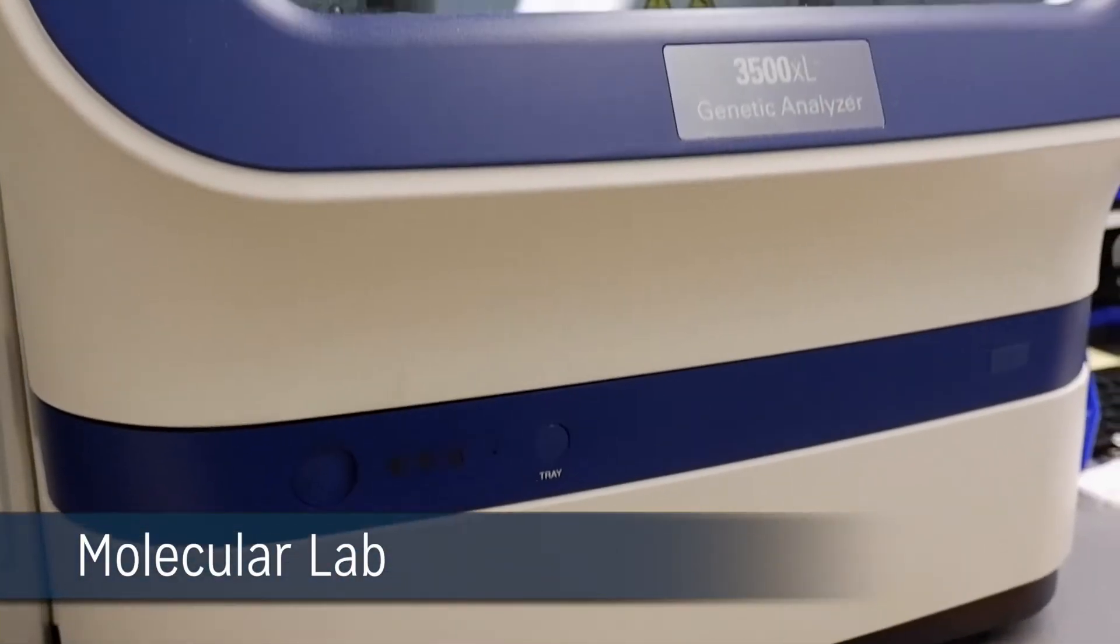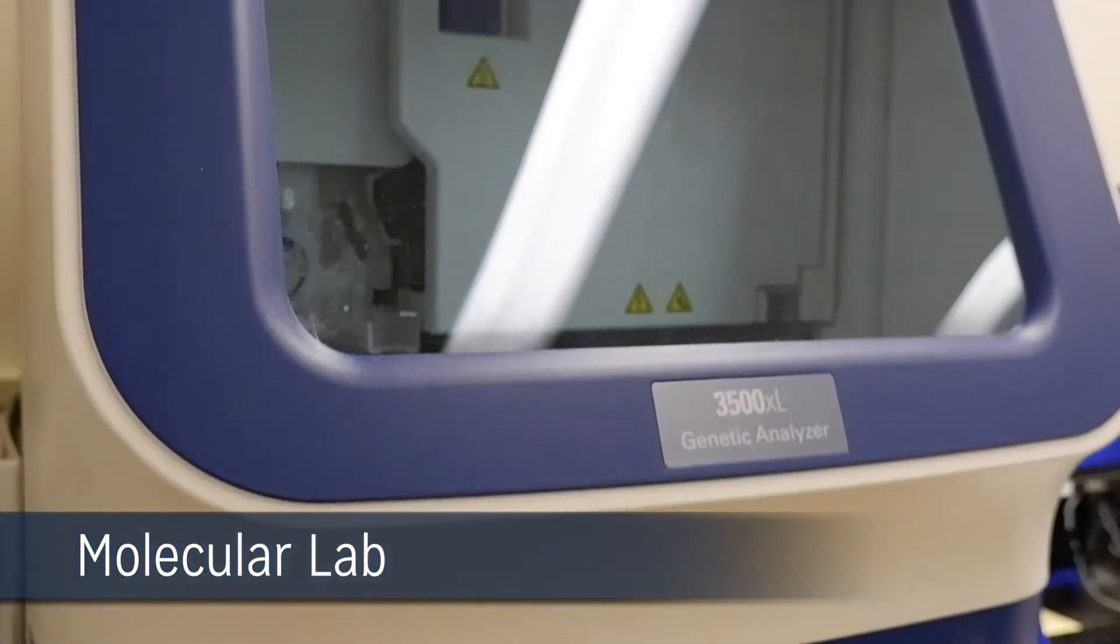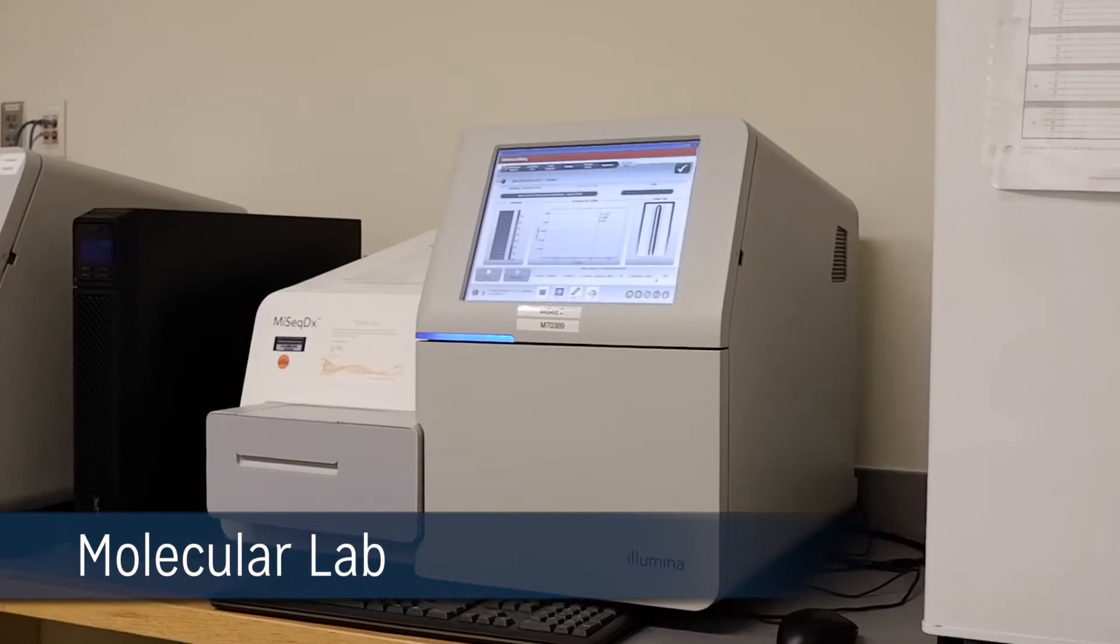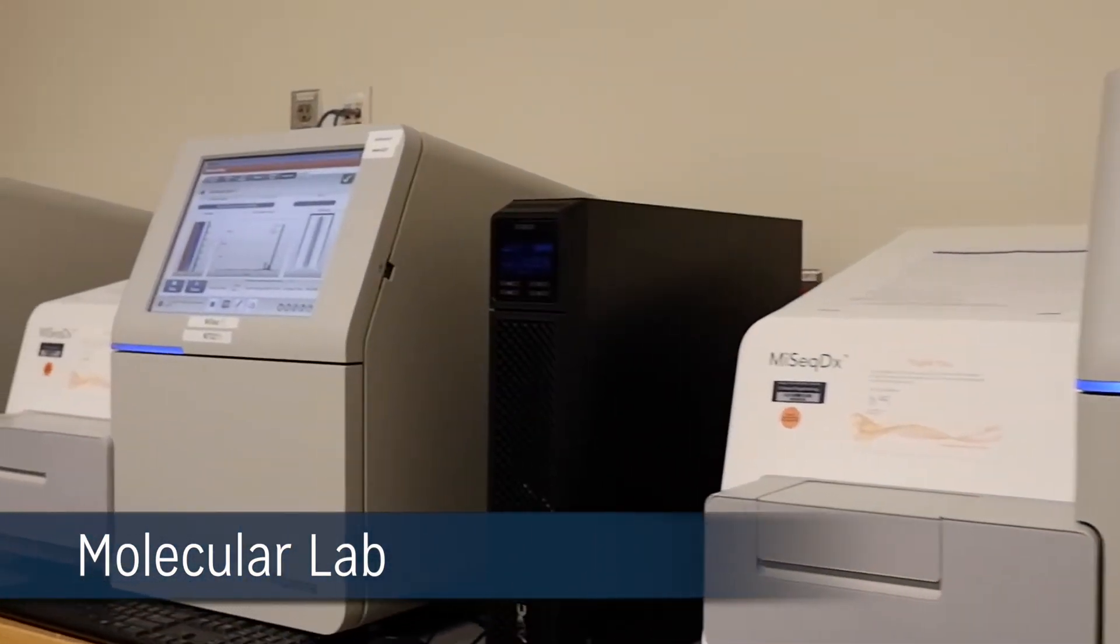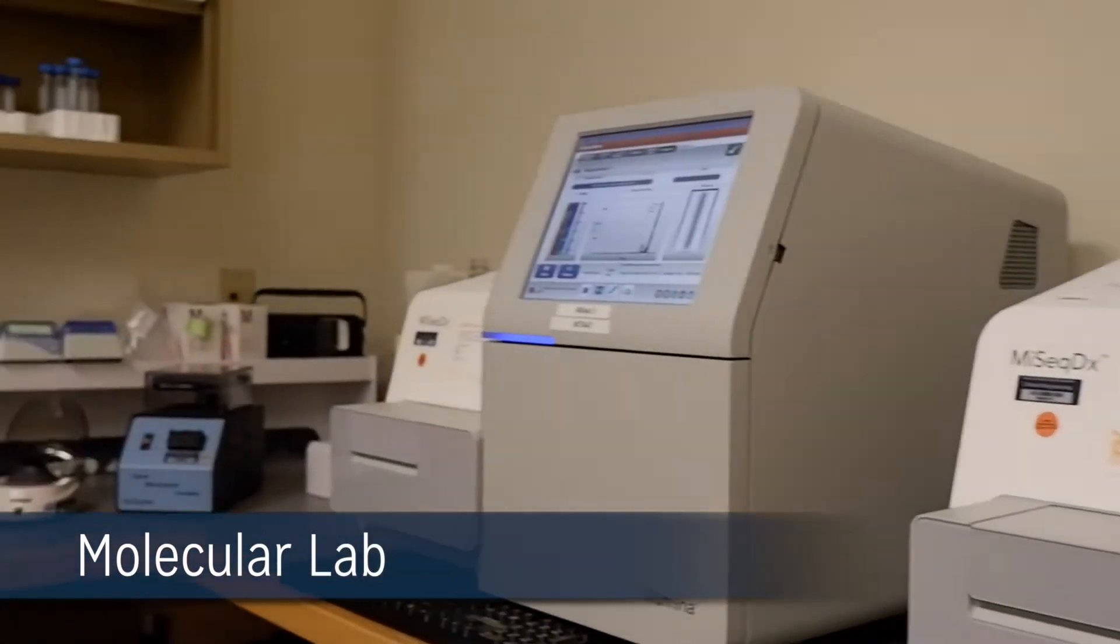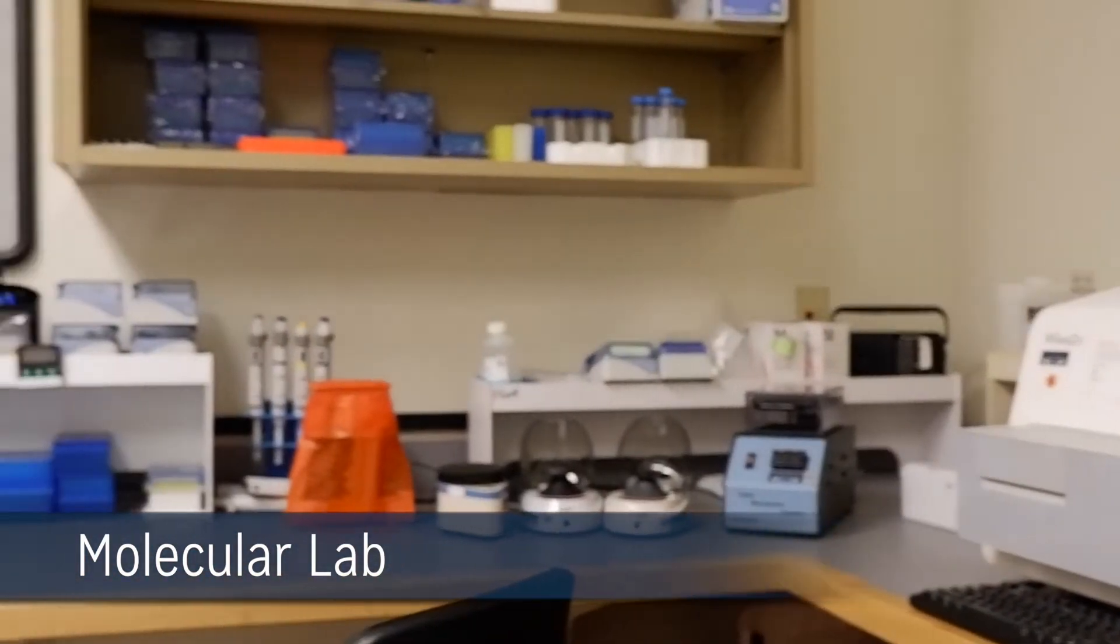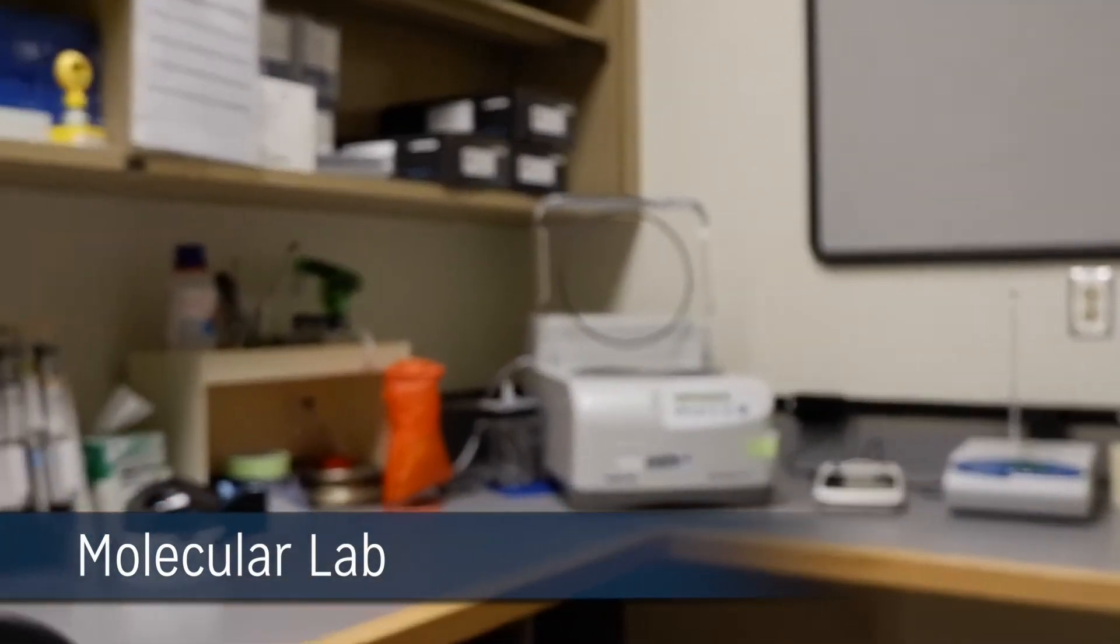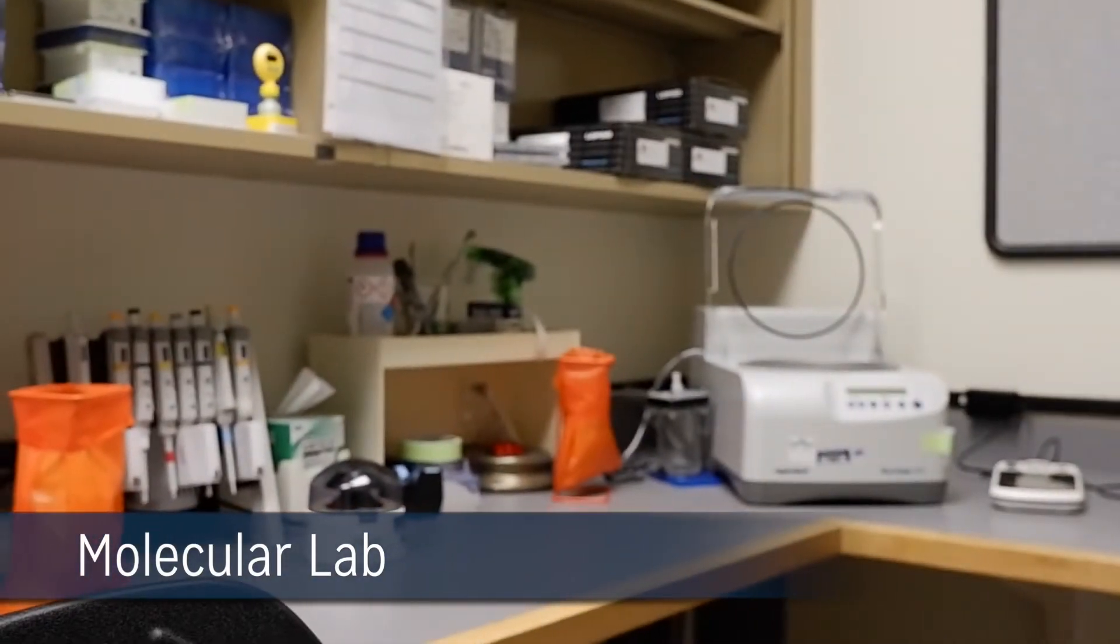The lab extracts DNA and RNA from a variety of specimen sources including blood, bone marrow, and formalin-fixed paraffin-embedded tissues and cytology materials. Molecular technologists perform extractions using a combination of manual and automated instrumentation. Following extraction, patient samples will undergo PCR and then analysis using various technology and instrumentation platforms.